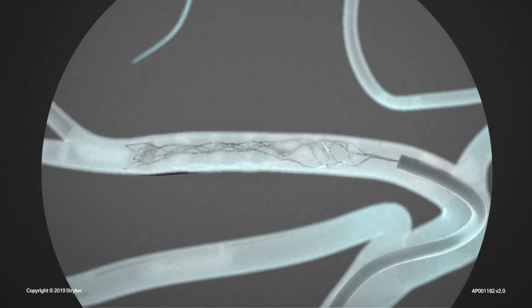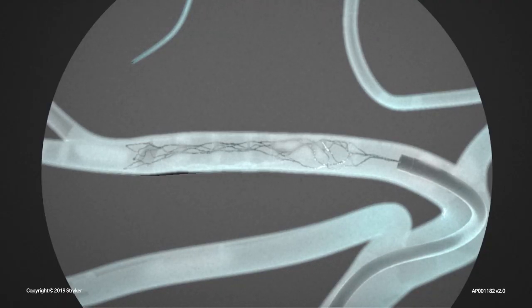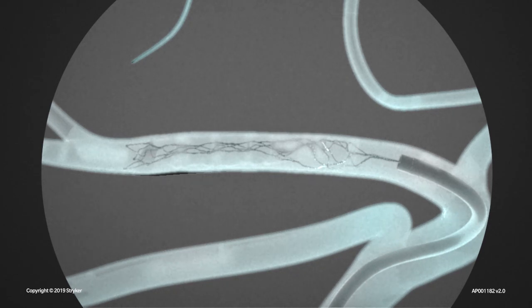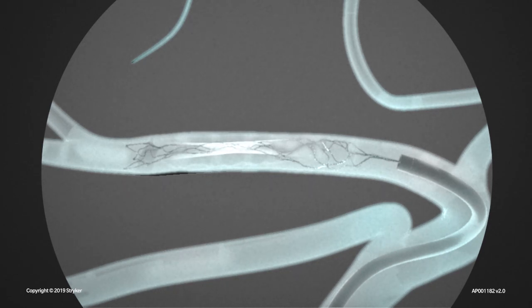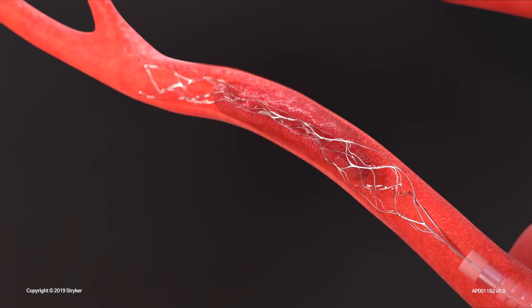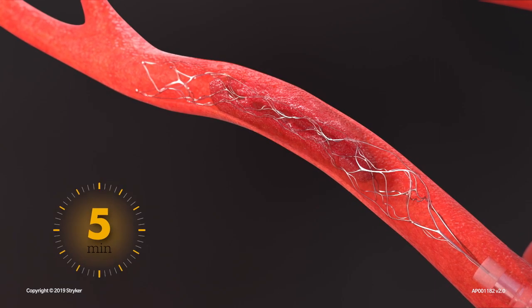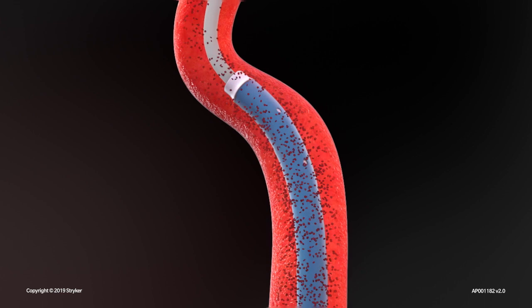The device is fully visible under fluoroscopy. The physician may notice a waist or indent in the struts where the clot is positioned. After deployment, visualize expansion of the stent into the clot, allowing time for clot integration.